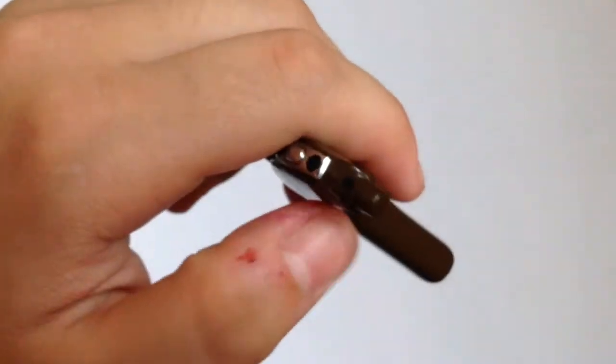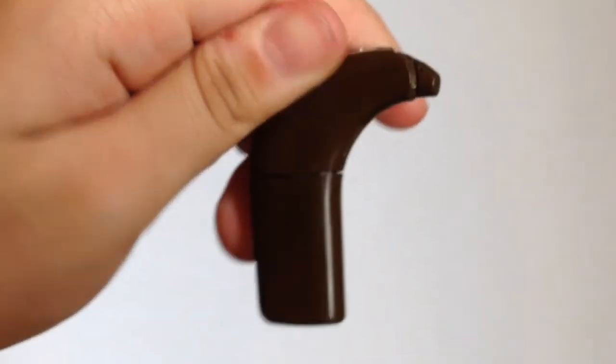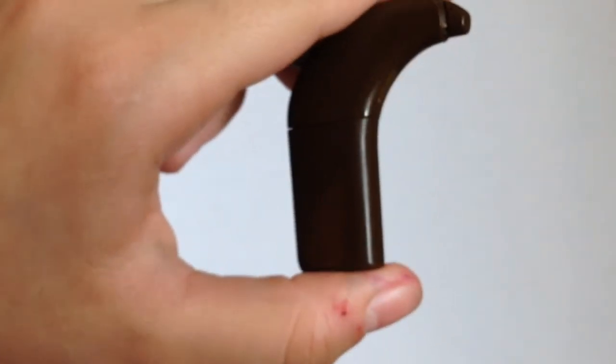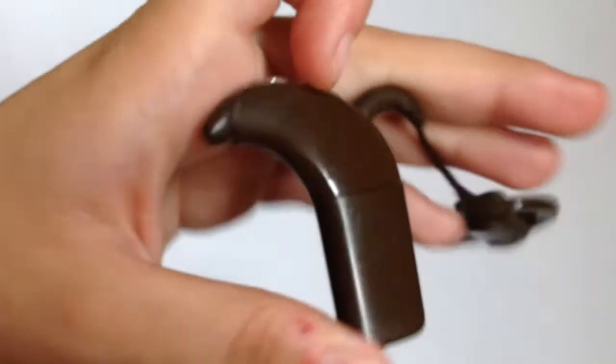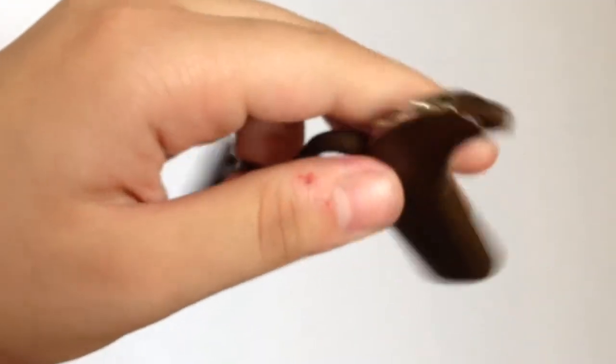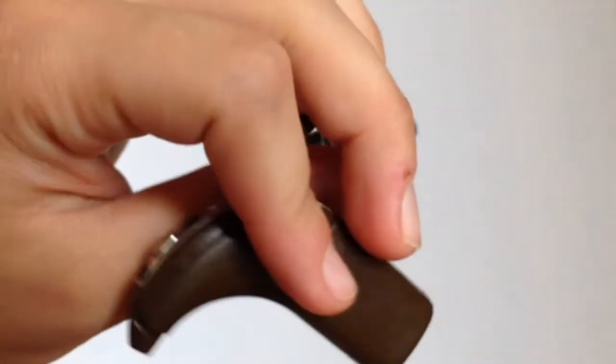See, it takes practice. But the thing is, I usually do not even take it off. And you shouldn't either. This is just for demonstration. I want to impress on you that you shouldn't have to take it off unless it's absolutely necessary. Unless you don't like the size of it or it's dirty or you want to replace it because it's broken or something. You really shouldn't take it off.